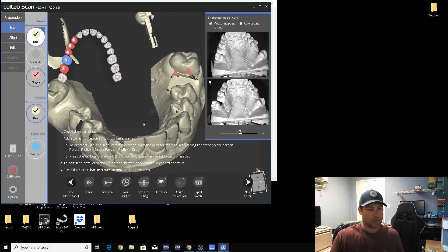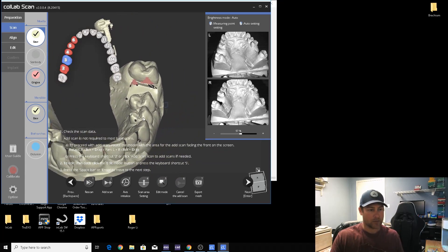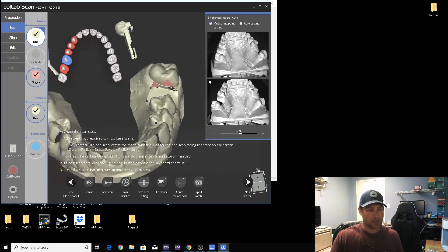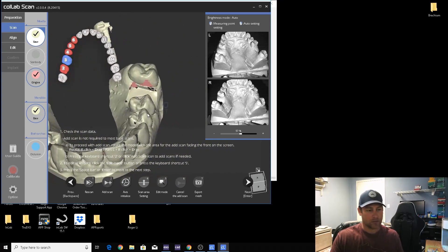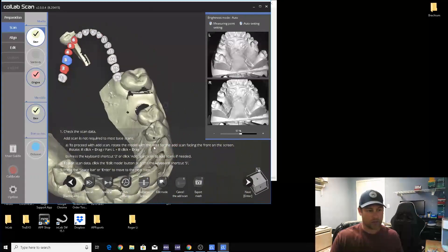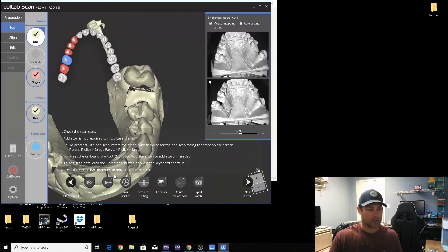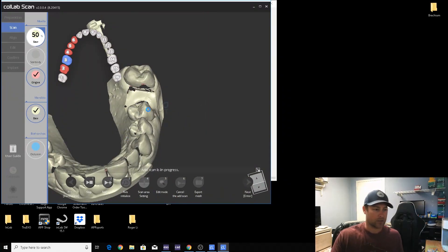Again, check to make sure your contacts get scanned properly. I can just stop it here and add one scan left. All right, shift right click on the mouse to slide it over or just right click on the mouse to rotate. We'll add a scan right here and close up that hole.